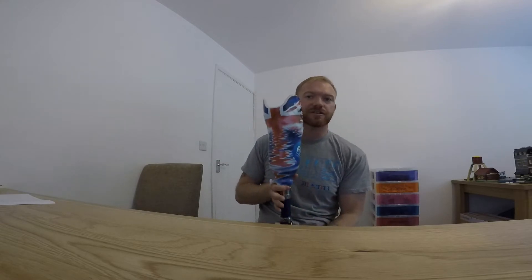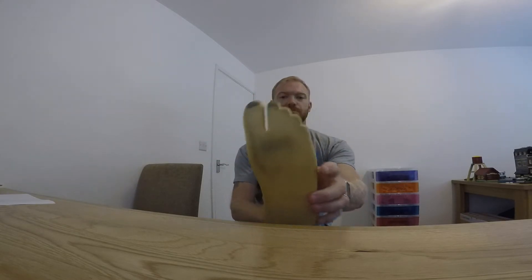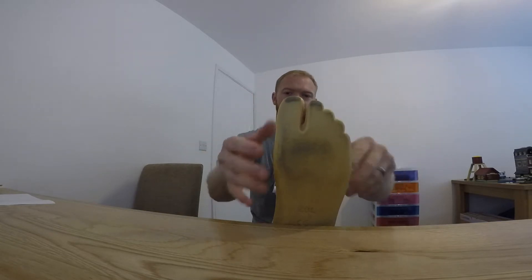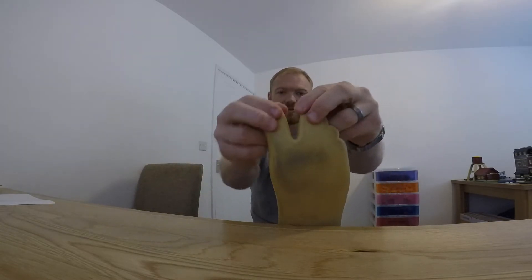Can't do it with the prosthetic I'm wearing - it's got a carbon blade inside it. However, for my water leg and rowing leg, as you see here, this one has a split toe. It's designed so you can wear a flip-flop, but it doesn't work - you wear a flip-flop, it flops off. So here's the split and the toe, the rest of them are joined.